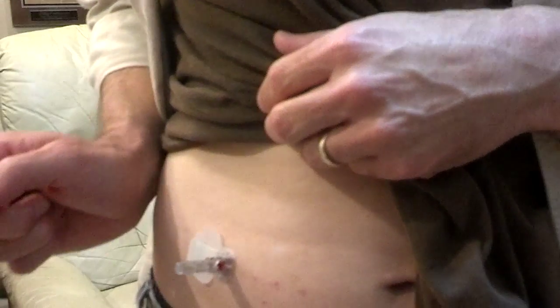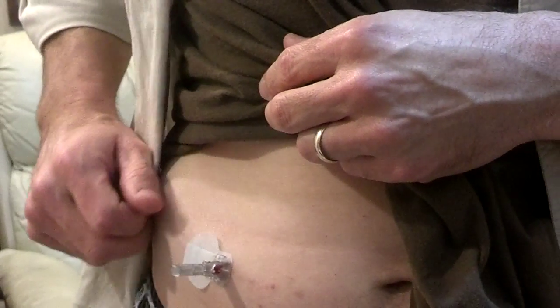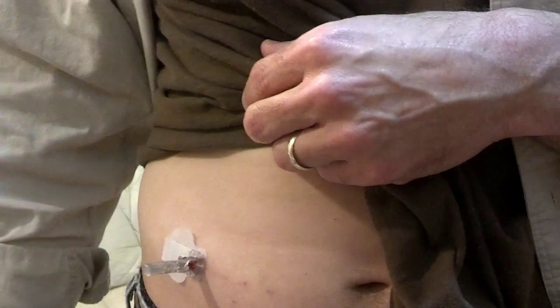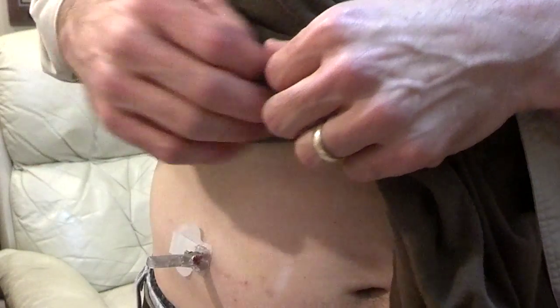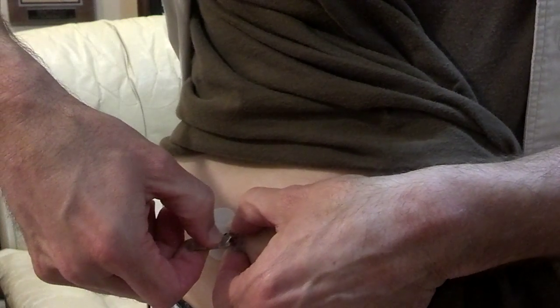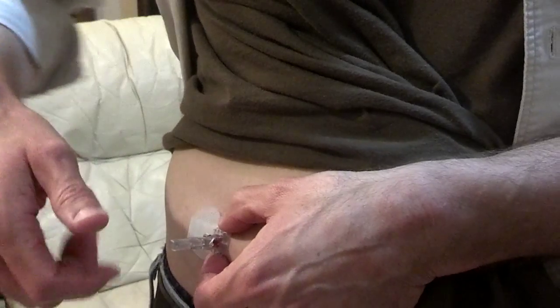Hopefully this will be the last video I have to take because this is not comfortable and I just want to get it out. I am afraid it's going to hurt because I've got a needle that's the better part of an inch long right now stuck down into my skin and I'm going to have to just rip it out. I am twisting and it's not releasing.